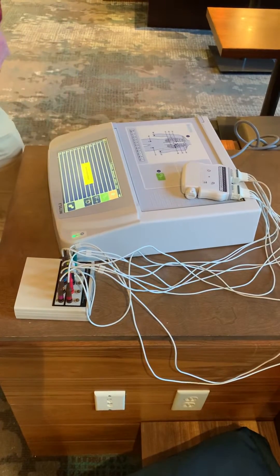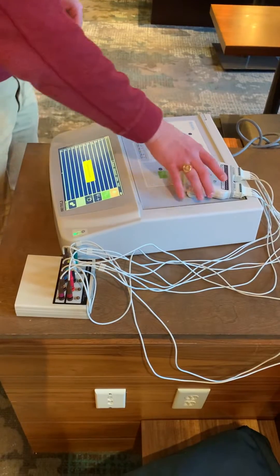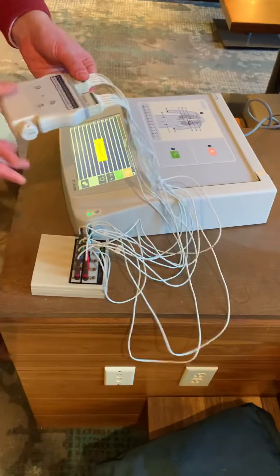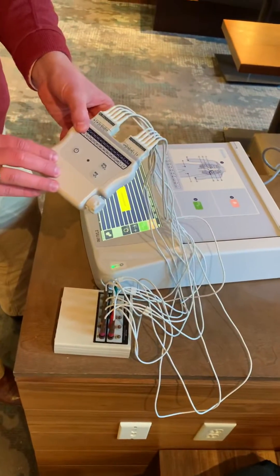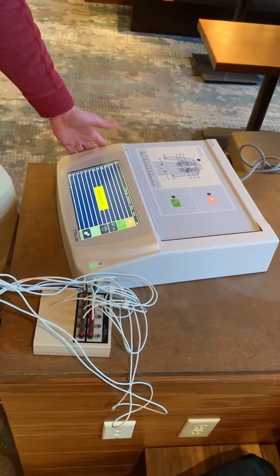This is a quick tutorial overview on how to use the Eli 280 resting electrocardiograph machine. The two main components are your wireless acquisition module, which has your patient lead cables, and then your actual acquisition box.